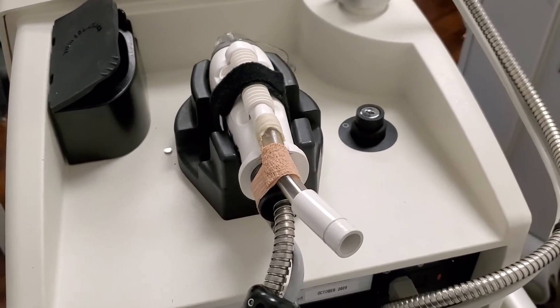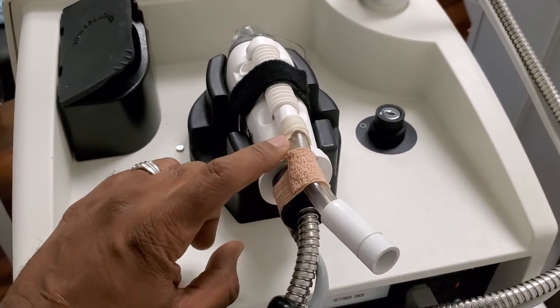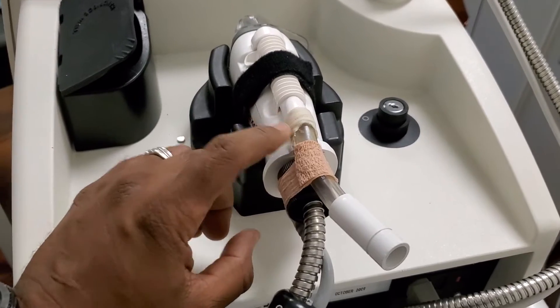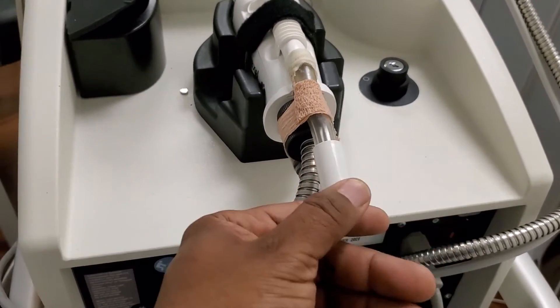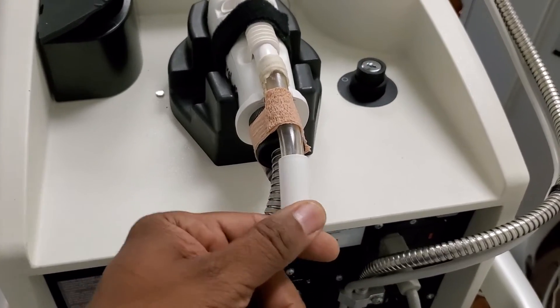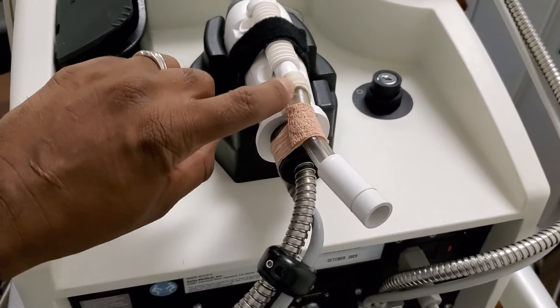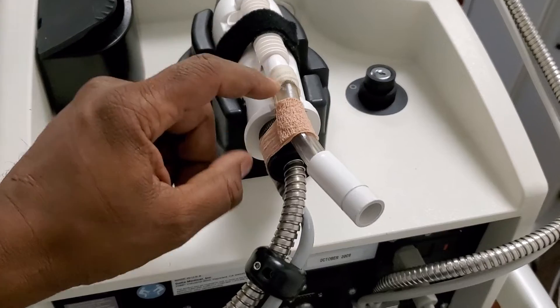The other thing that will help you guys, these guys I keep replacing them. What causes this to break is when you leave the Zimmer hose connected. It puts pressure on the hose and what it does is it breaks it on this little knuckle here.